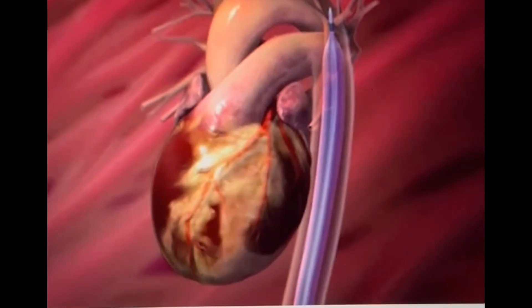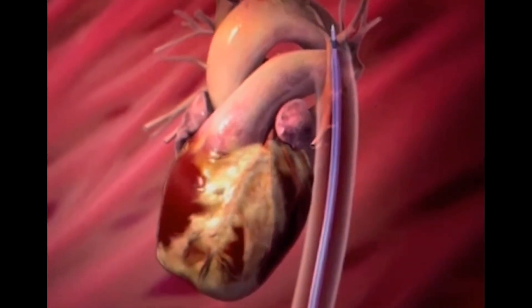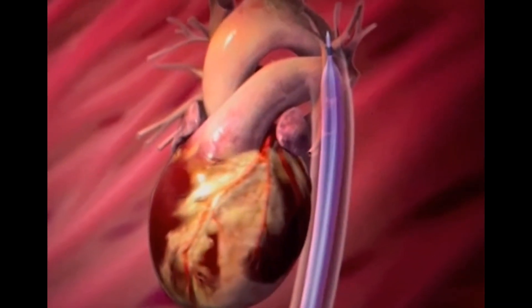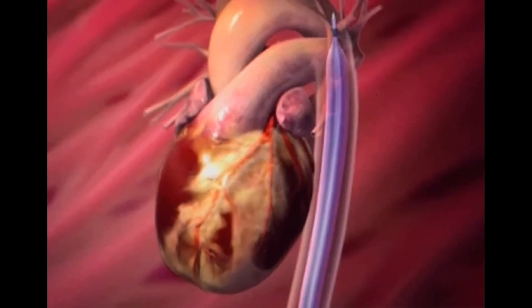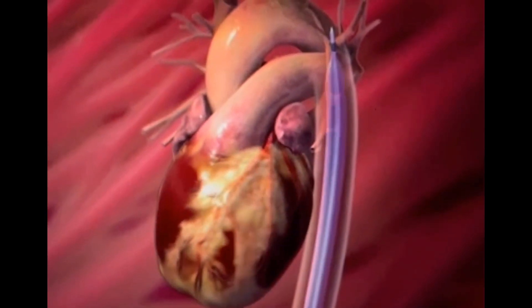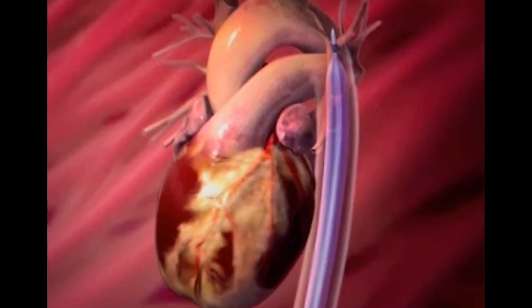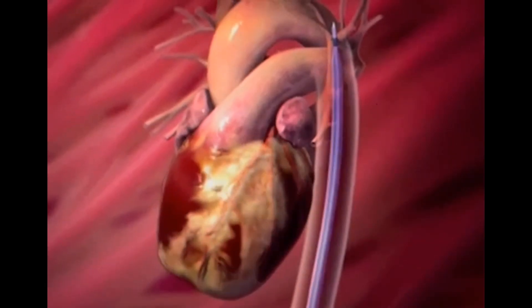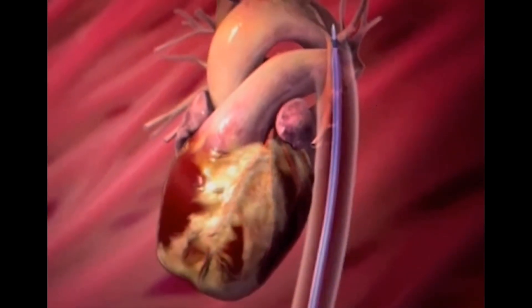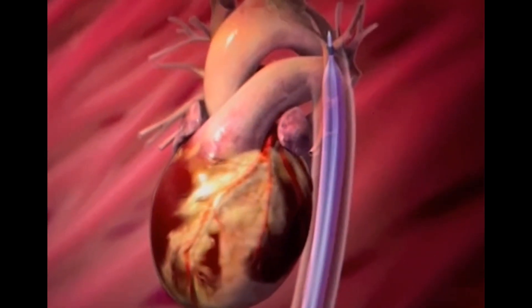As a good example for coronary perfusion, balloon inflation displaces blood during diastole and increases coronary perfusion during diastole, when the heart muscle is relaxed. Coronary perfusion occurs mainly during diastole. The rapid deflation, parallel to left ventricular ejection, decreases left ventricular afterload.